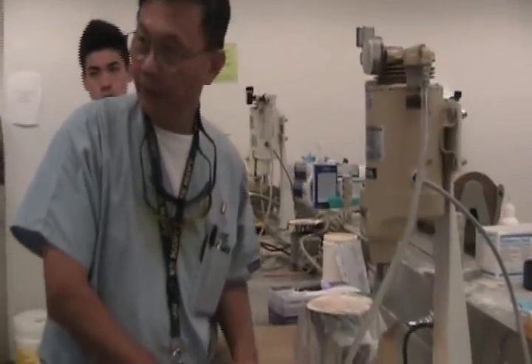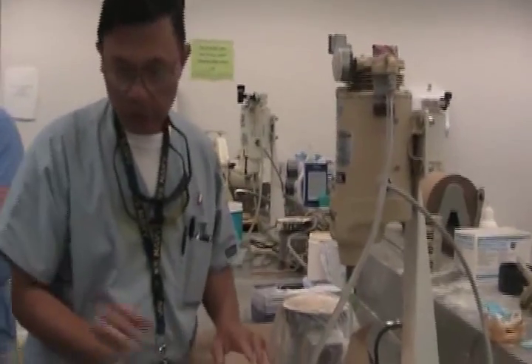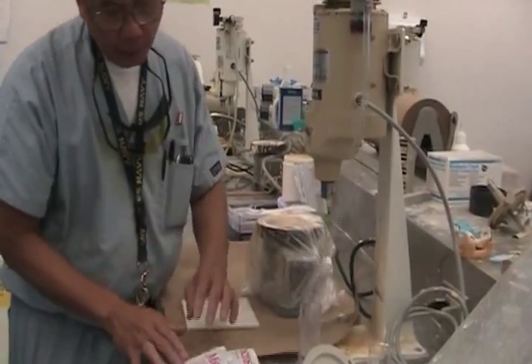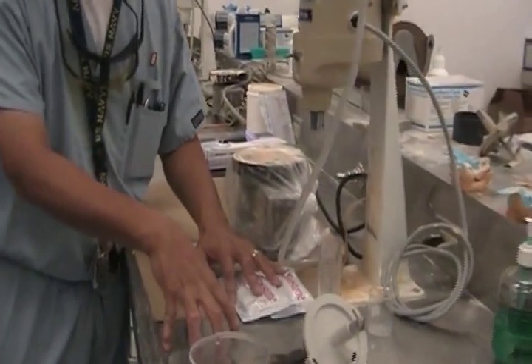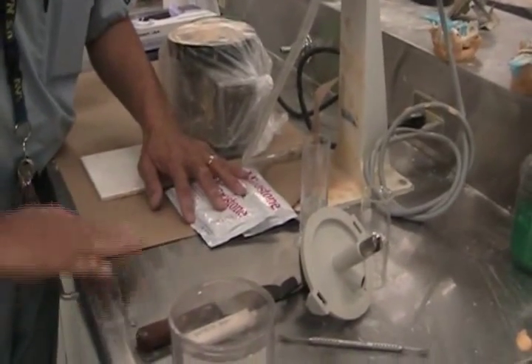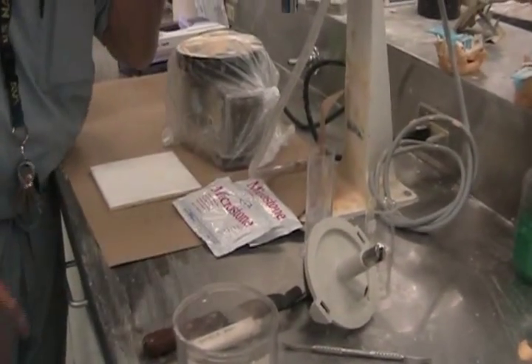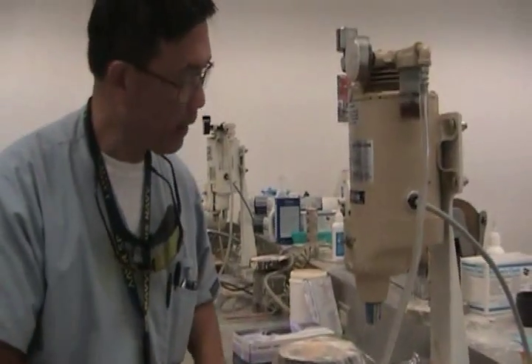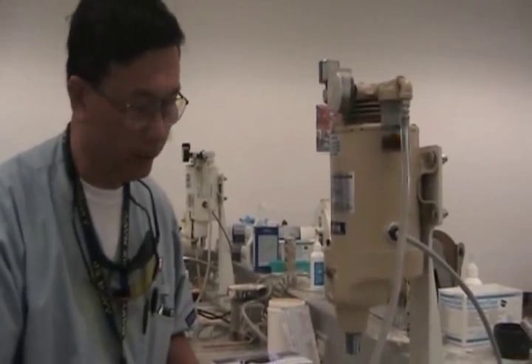This was out of here, which is a good idea. If you don't have tile, a sheet of plastic will work. I don't use paper because it absorbs. And if you don't have one, I'll just lay it on the counter. But I always make sure I put petroleum jelly on it, so it's easy to just pick up and I don't have to clean as much. It's much better if you have something to put your stone on as it flows.